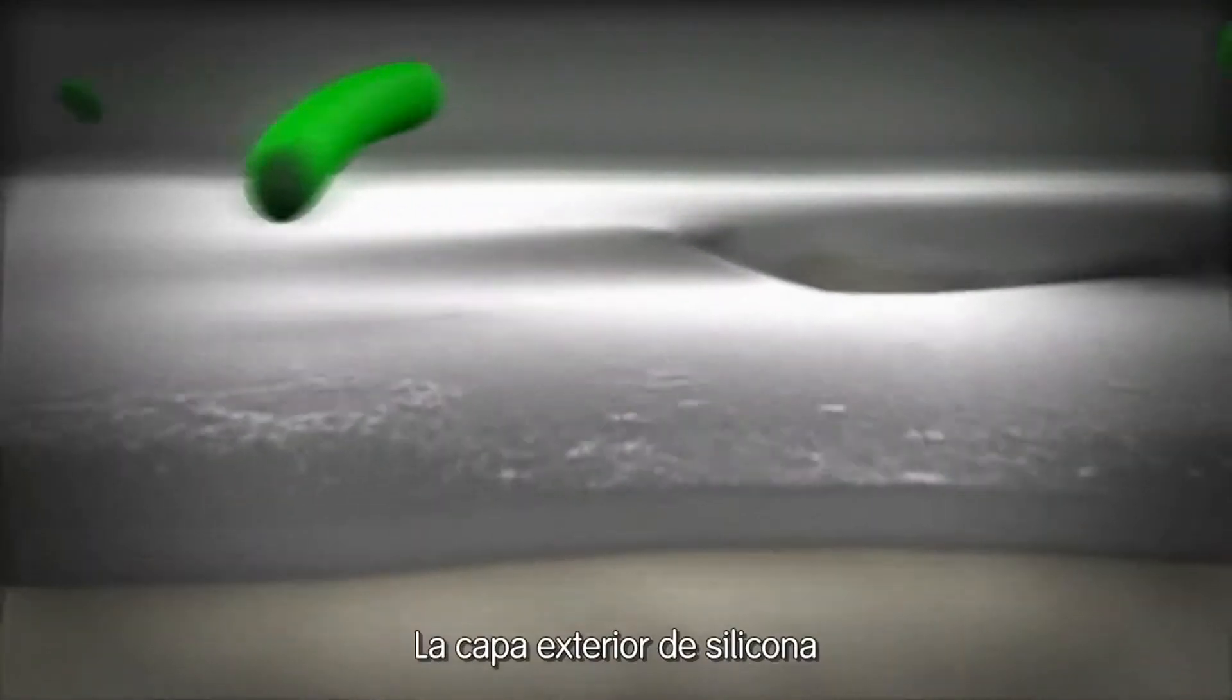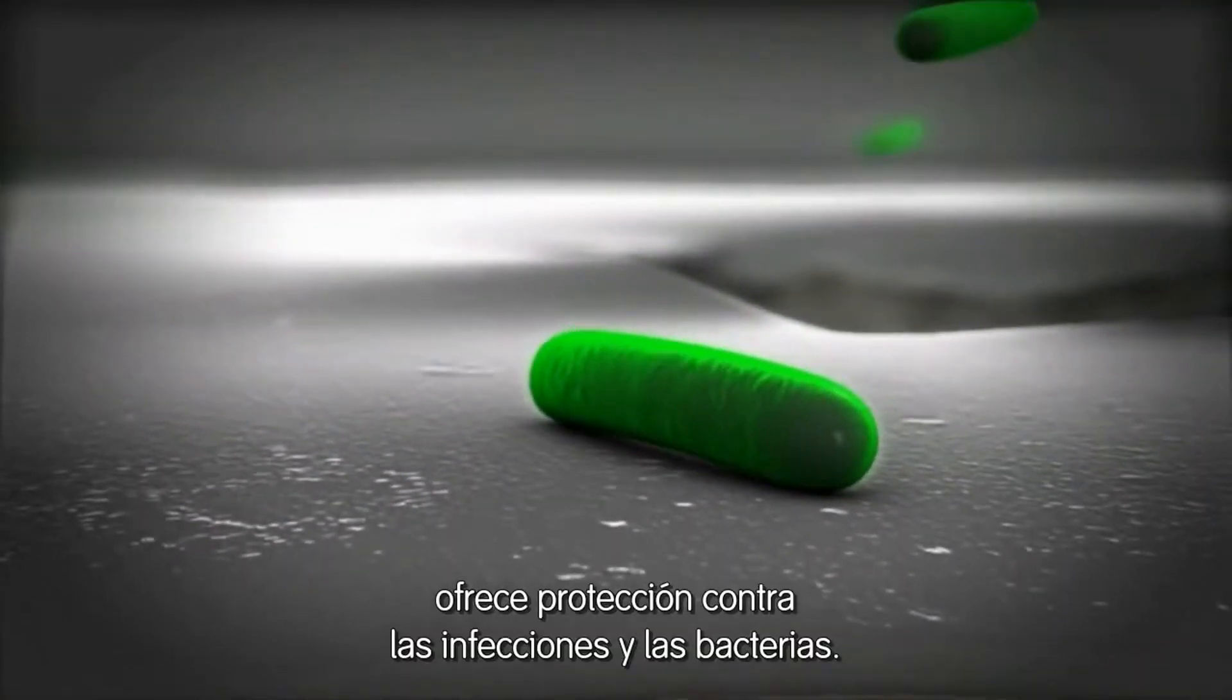The silicone layer on the outside offers protection against infection from bacteria.